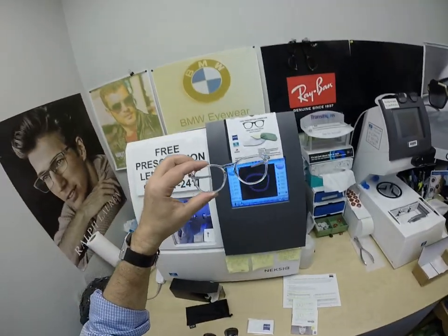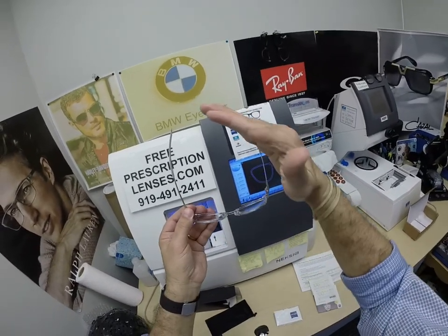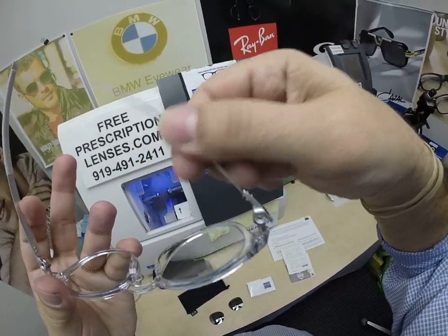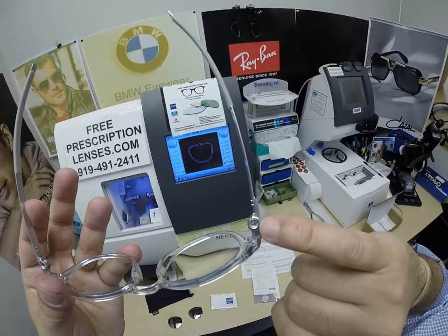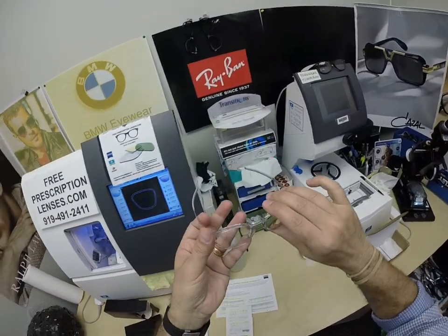Of course, you're going to receive all of this. This is going to look really, really good. Light, strong, very strong, lightweight frame. It has built-in curvature to fit really well. No screws to ever come loose — there's a ball joint for the hinges. An orthopedic surgeon told me that's the same type of hinge they use for knee and hip replacements, made out of the same titanium, so it won't rust or corrode.